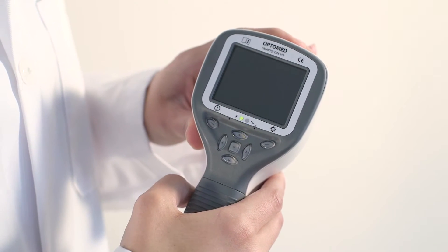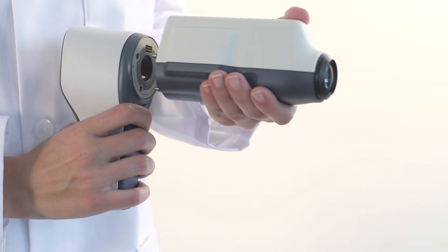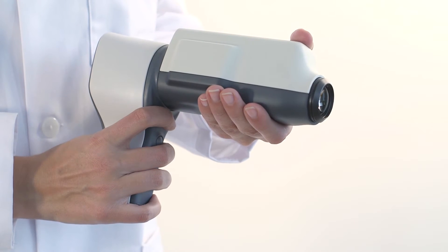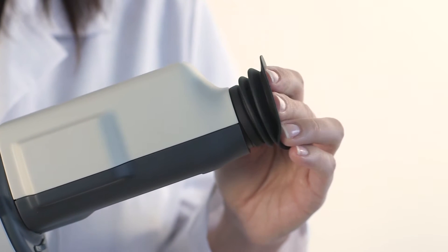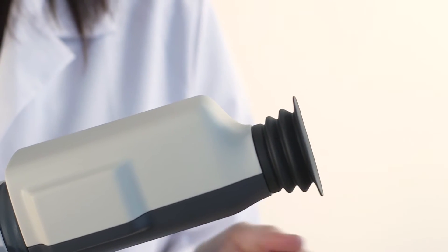The device is powered on and off by pressing the left soft key. Attach the optics module by pressing it firmly into place. To detach the module, slide the release button. The module should be used with an eye cup to give additional stability during imaging. Attach the eye cup by pressing its base around the lens ring.